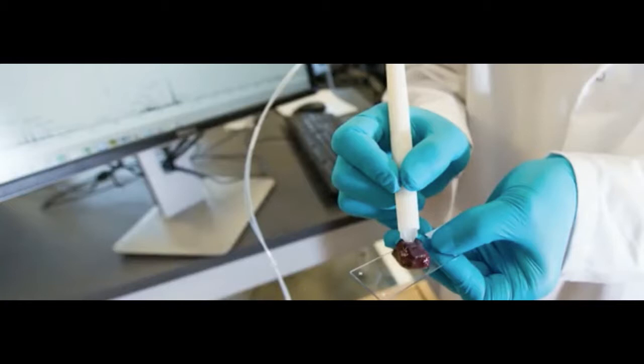When doctors touch the tip of the pen to a suspect tissue sample and press a pedal, the pen releases a small droplet of water. The pen then sucks up the water along with some residual tissue into an on-site mass spectrometer and analyzes everything right there on the spot.